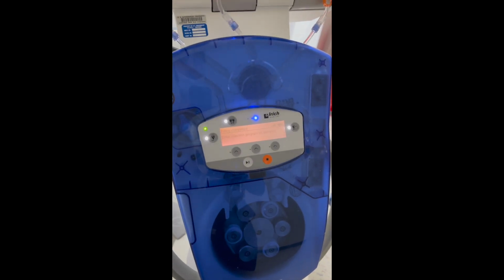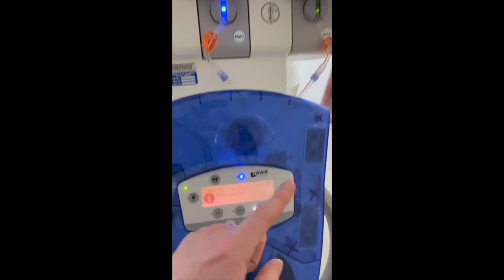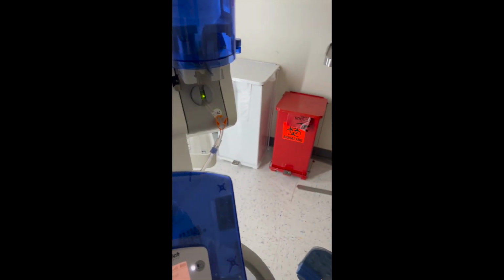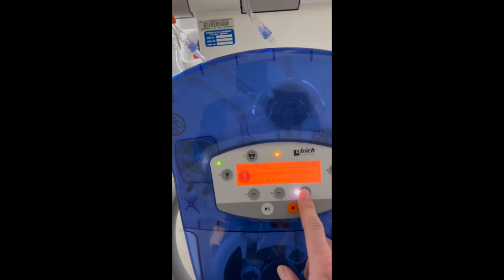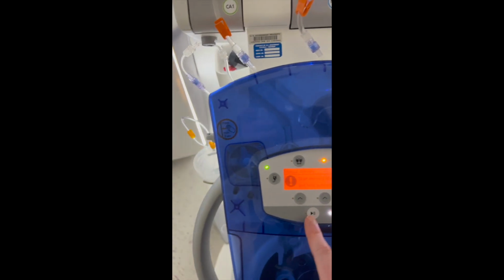So if we needed to, say, switch from injector 1 to injector 2, you just click this button, and it'll say contrast media 2 is selected. You go continue. And then now we're set over here. If you click on this button, then it's basically allowing you to manually start the contrast.